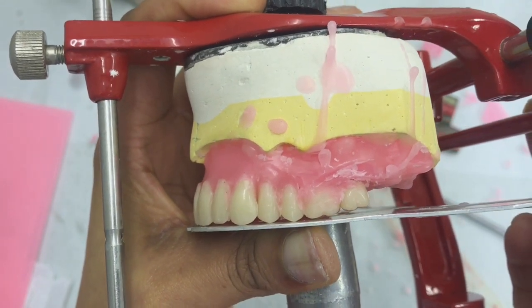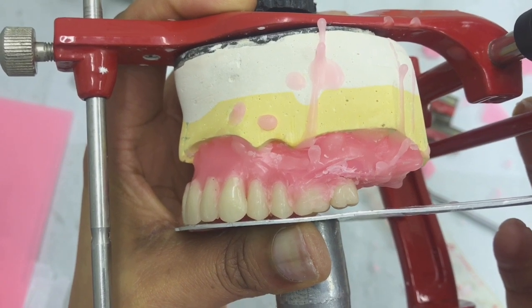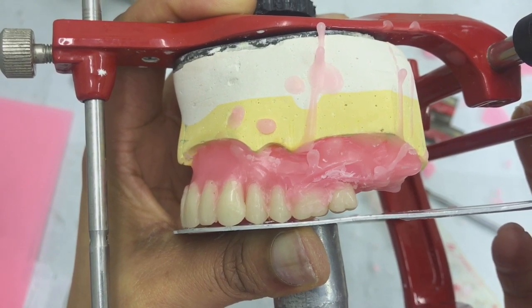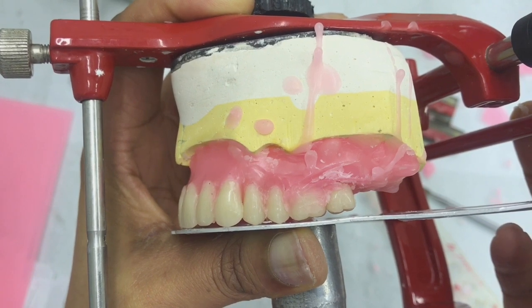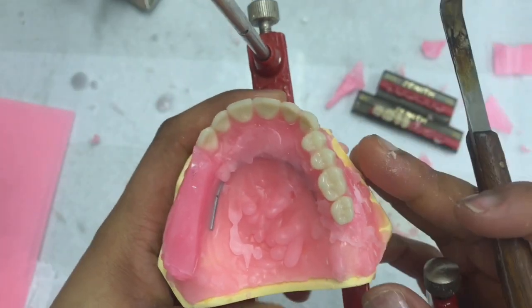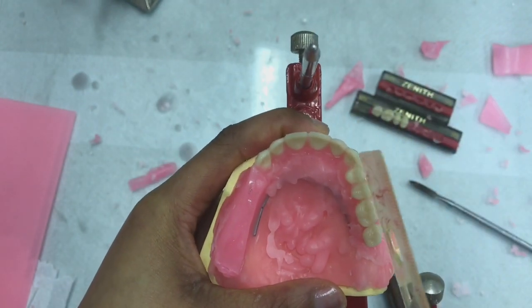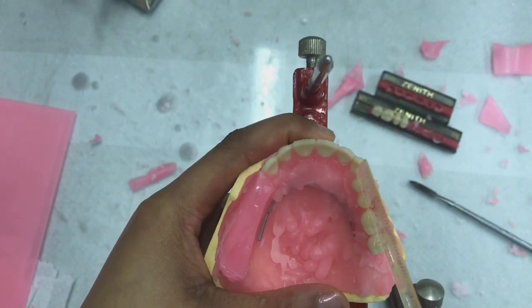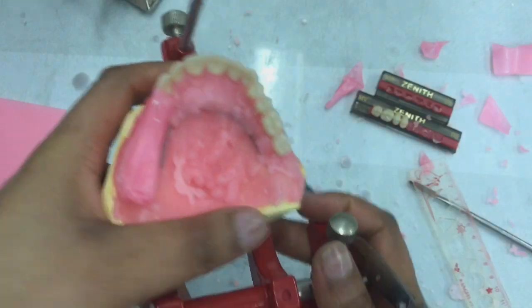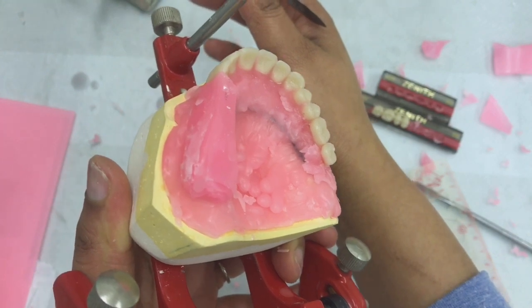So there I've created my curve of Spee, and as you can see, if I'm looking at my cusps from the buccal view, you can clearly tell that the mesiolingual cusp is showing, as much as it's off the table. But basically it has the same profile as the first molar. Right, so what I just need to do now is double check the positioning of the teeth. So the ruler must start at the center of the cingulum and end at my 2mm line. So that seems fine. So another thing that I just need to do before I move on is seal my teeth, otherwise they will all fall off.